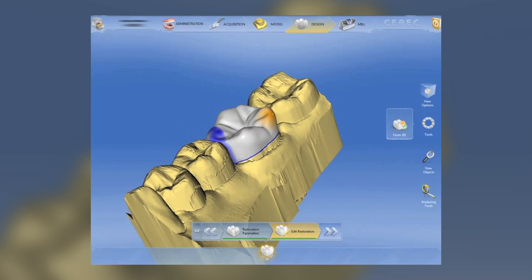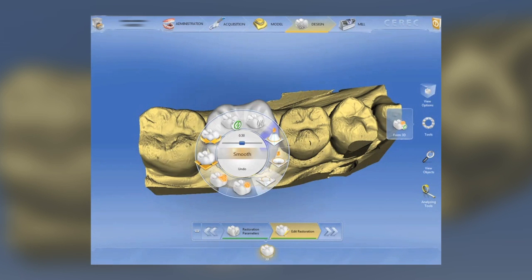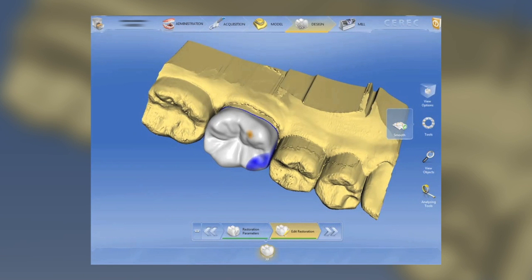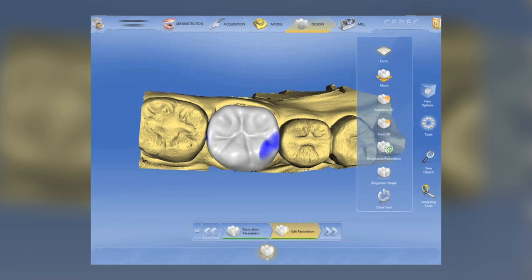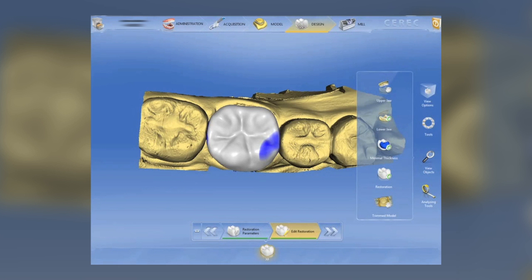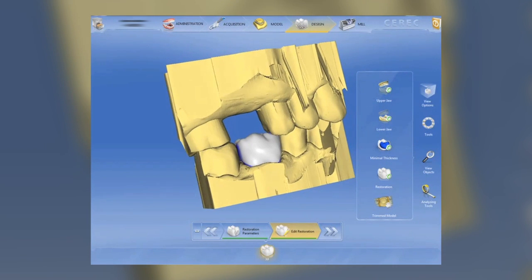This is a feature that E4D users have had for a while and CEREC users have been asking for. Sirona has not only introduced it but made it much better, because we have form 3D and then we have auto form. Form 3D grabs individual portions of the restoration, while auto form grabs larger portions — you can move entire cusps, the entire occlusal surface, and any other part of the restoration. The yellow indicator shows what part of the restoration we're working on. You can click the tool wheel via the icon on the right side. I'm sure by the time the software is released, we will have new tools. We can bring up the opposing, and the models will get cleaner by the time the general CEREC population gets the software.